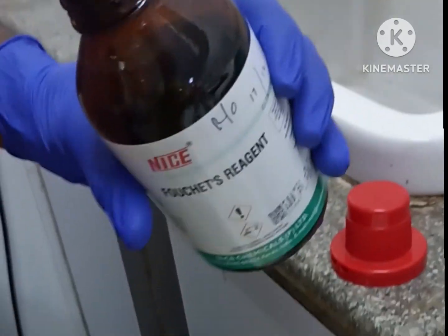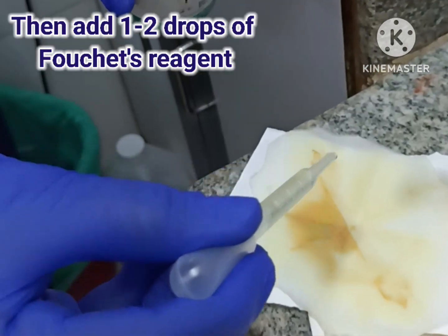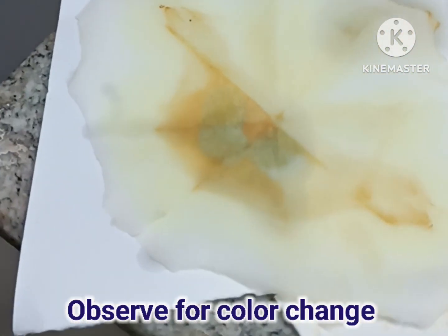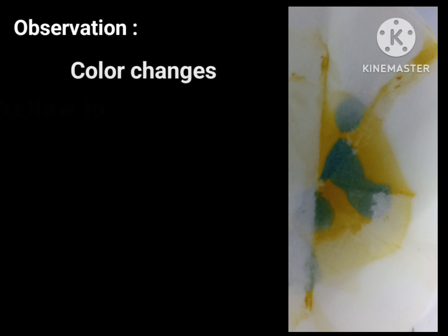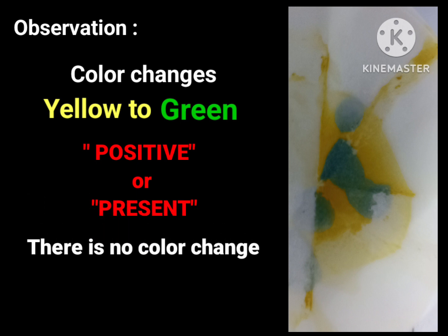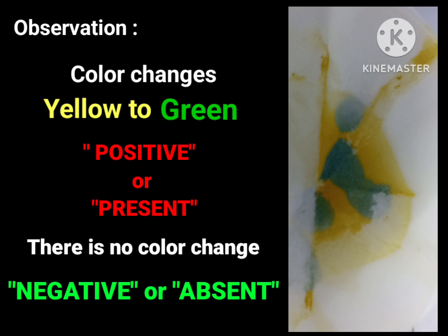Next, we spread and add 1 or 2 drops of Fouchet's reagent onto the precipitate. The yellow color precipitation undergoes a color change. The result shows a green color — green color is positive for bilirubin.